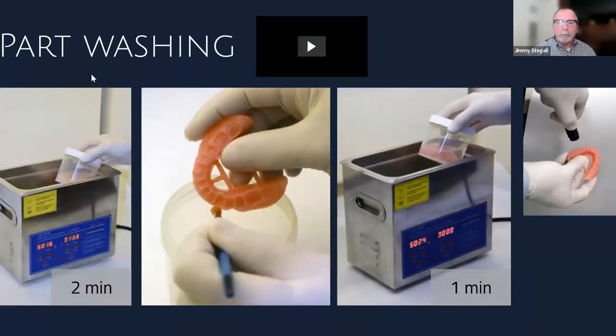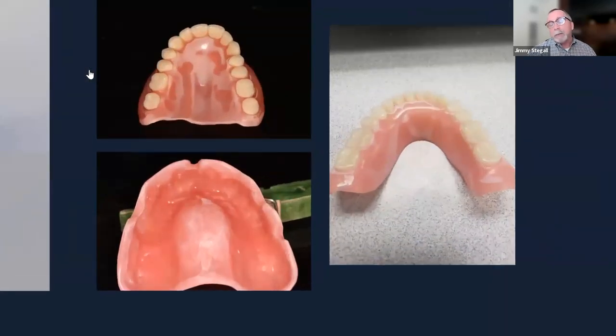After the last cleaning bath, dry everything thoroughly with an air syringe so any remaining resin shows up for a quick re-scrub. If you skip this and miss residue, unset resin or dirty alcohol subsurface can get sealed in during curing and may not appear until a day or two later when it self-cures. Clean the parts religiously to avoid this — it's one protocol step you must follow.